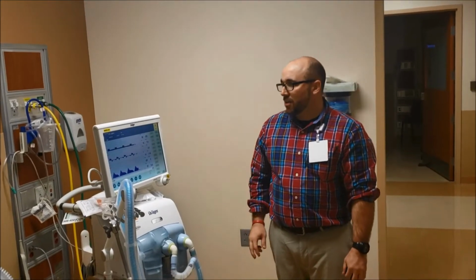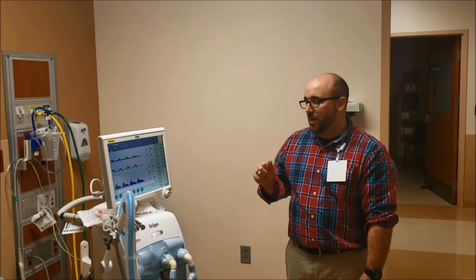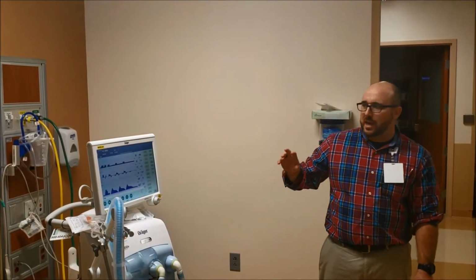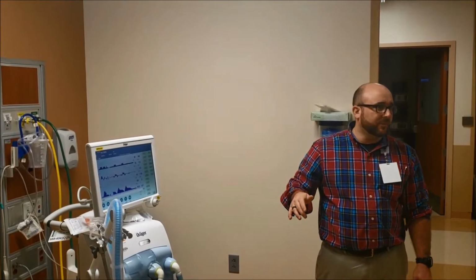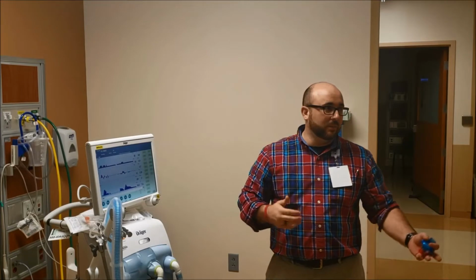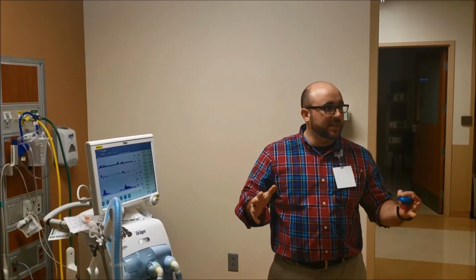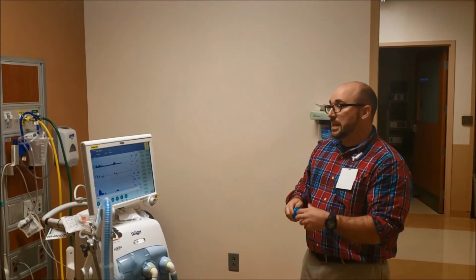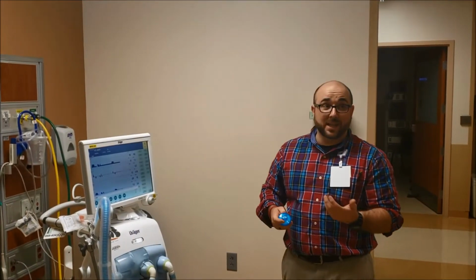Our silence is still on. Another thing that I would really watch is before you leave the patient, make sure it's a toggle, so it goes on or off. Make sure you have all the alarms active before you leave. Ideally, I would have anything at the top before you leave the patient, because that means everything's active. So if I hit the silence, and if that same alarm reoccurs, it should alarm again.